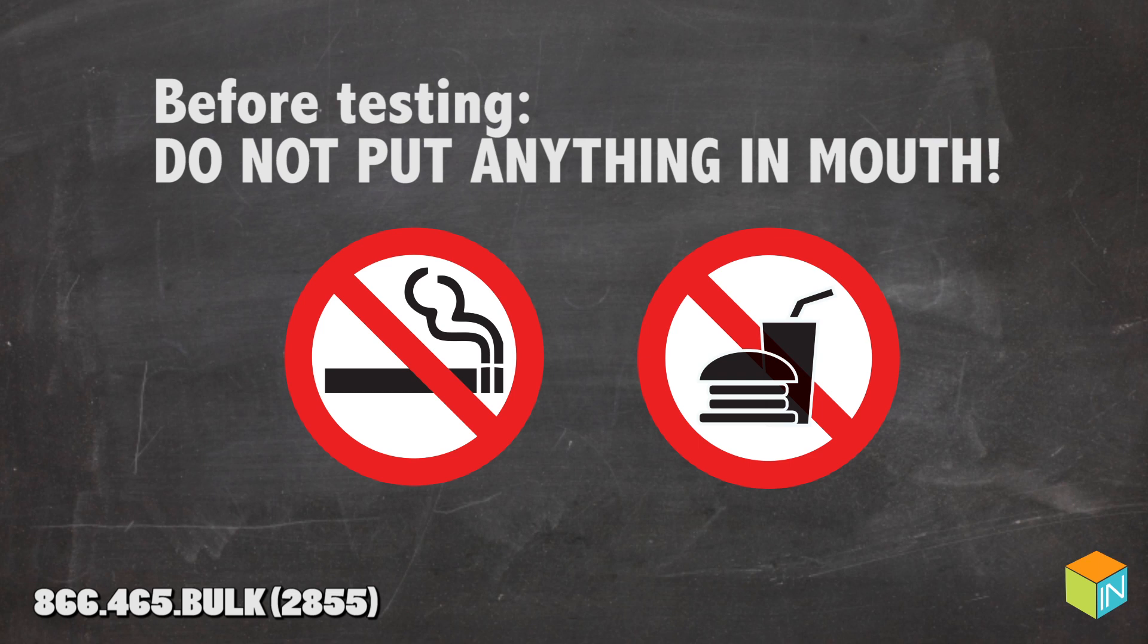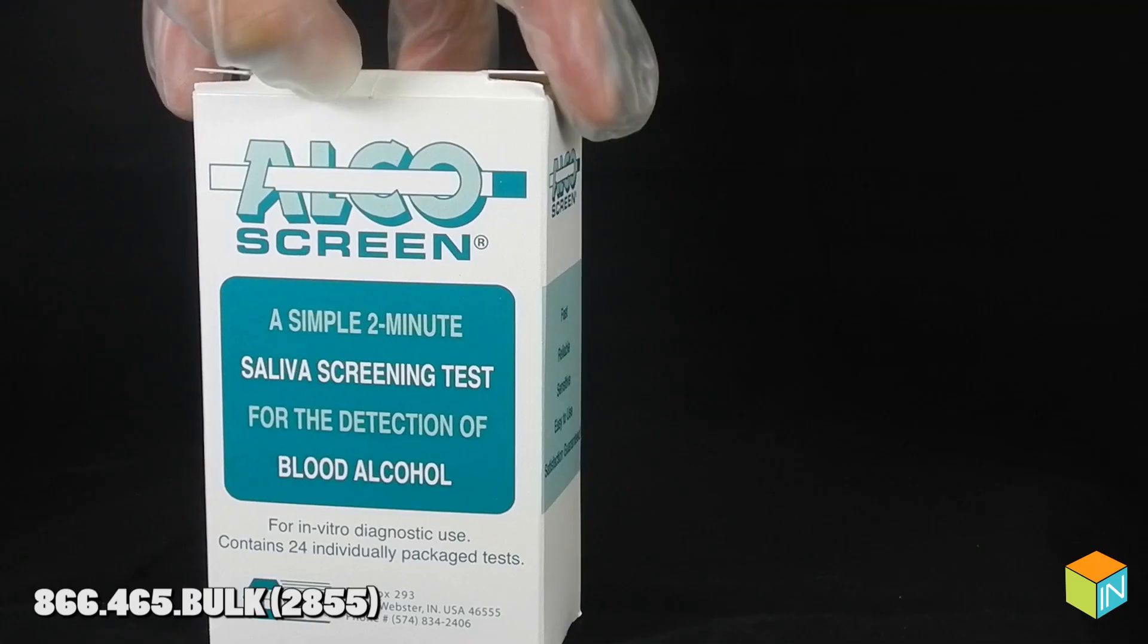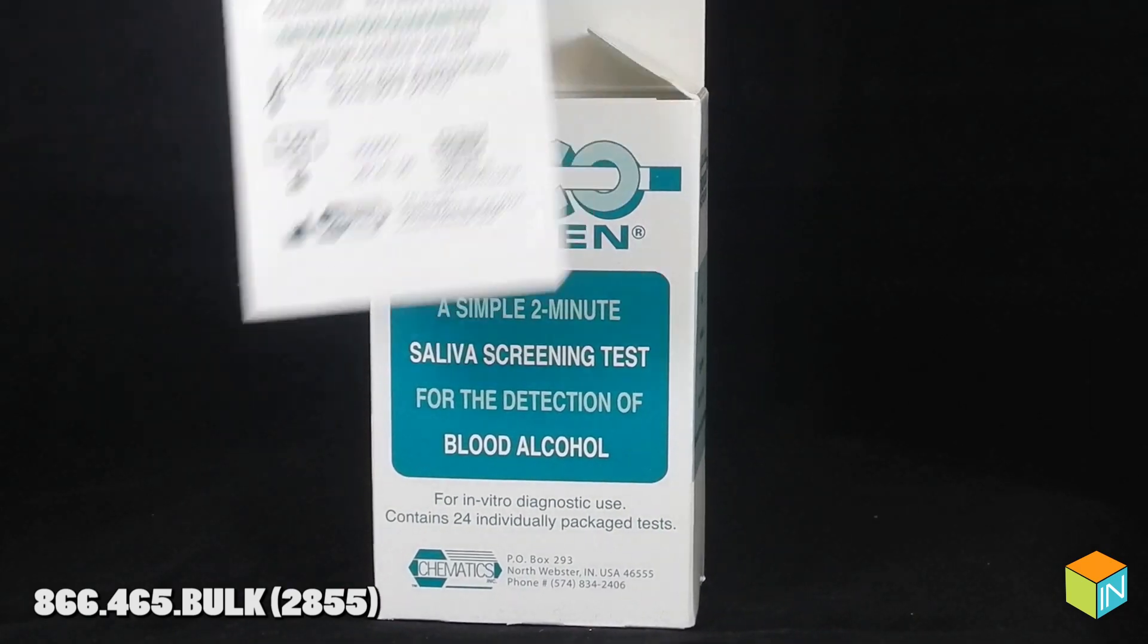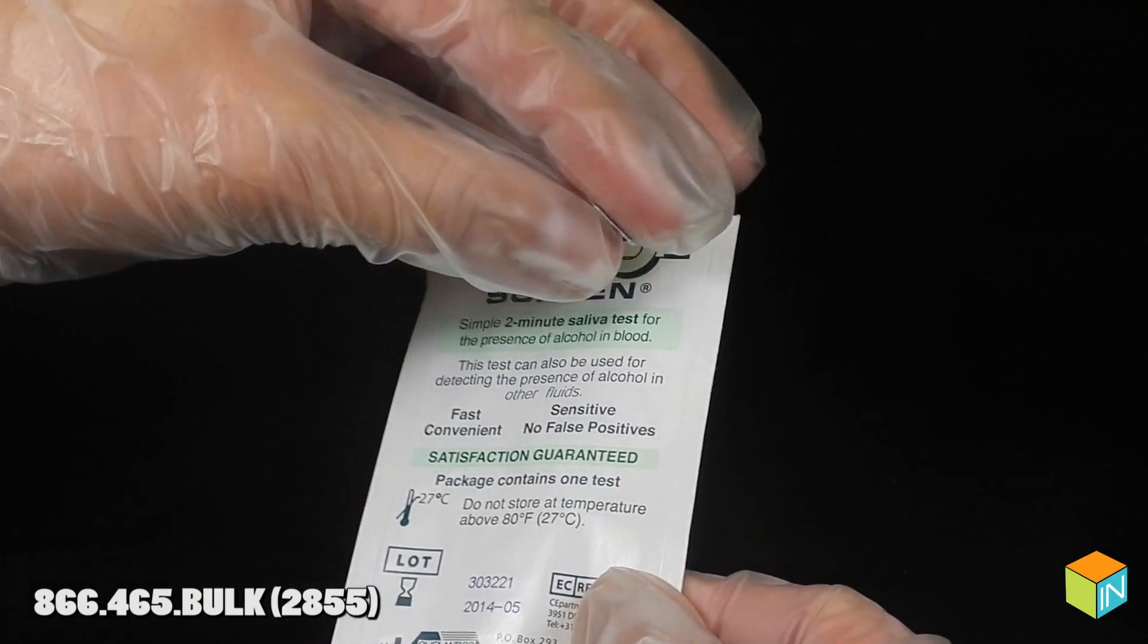Directions for intended use: Before you begin, do not place anything in the mouth for 15 minutes before testing. Remove test package from the box and let it reach room temperature. Open package immediately before testing.